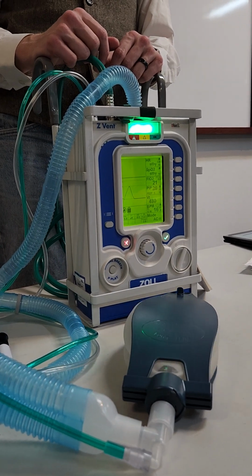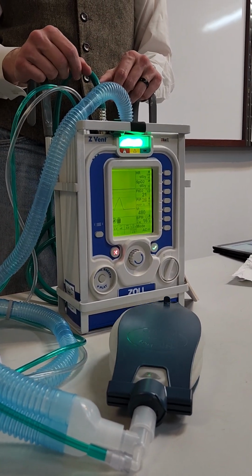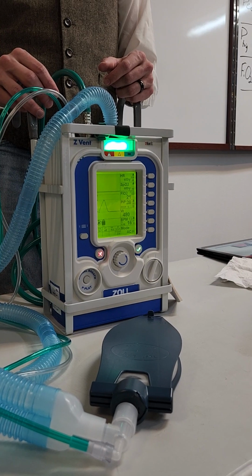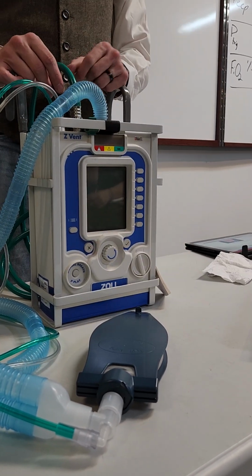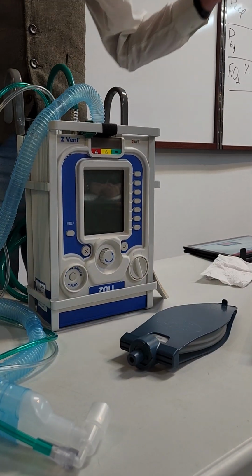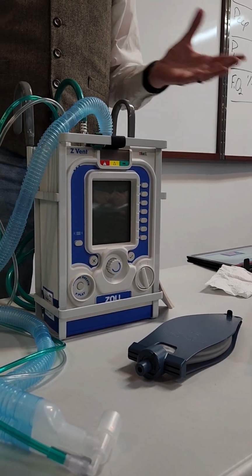Now, a lot of times with our calls, we set in the settings and we don't want it sitting there sucking in oxygen and having the ventilator run for 15 minutes while we're messing with medications and drips and stuff like that. So you get your settings in, turn it off, and then you can go to last setting. You have it where everybody's ready, we got the patient over onto our stretcher, they're all hooked up, because the last thing you usually want to do is change the vent.